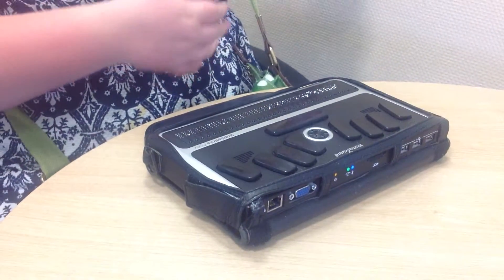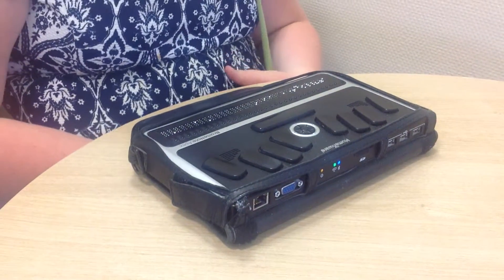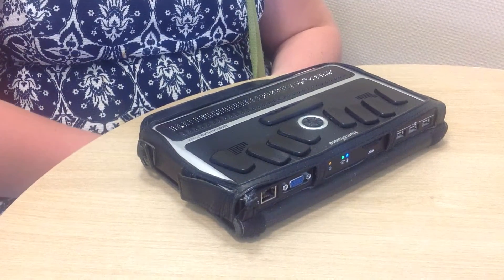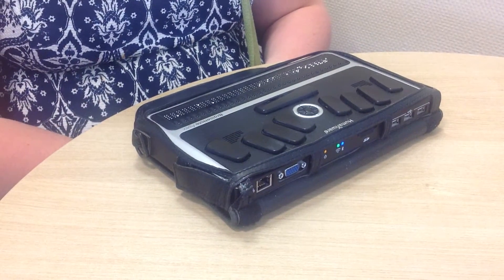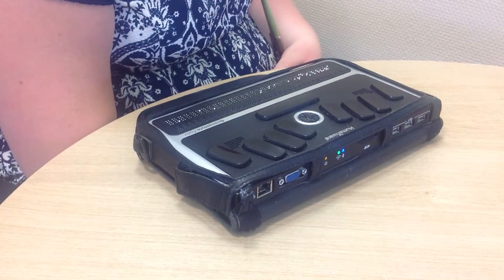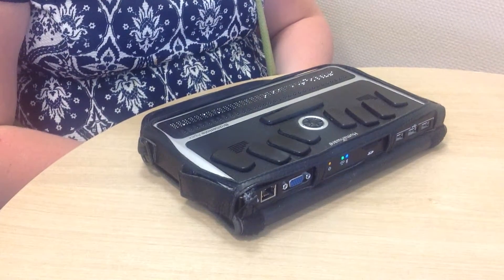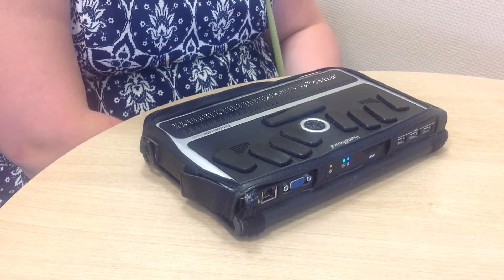Hi, this is Danielle. I'm going to show you how to change the voice. I've already shown you how to turn the voice up and down, make it faster and slower, or alter the pitch. But this is actually going to determine whether you want a male or female voice, child voice, or robotic sort of voices.